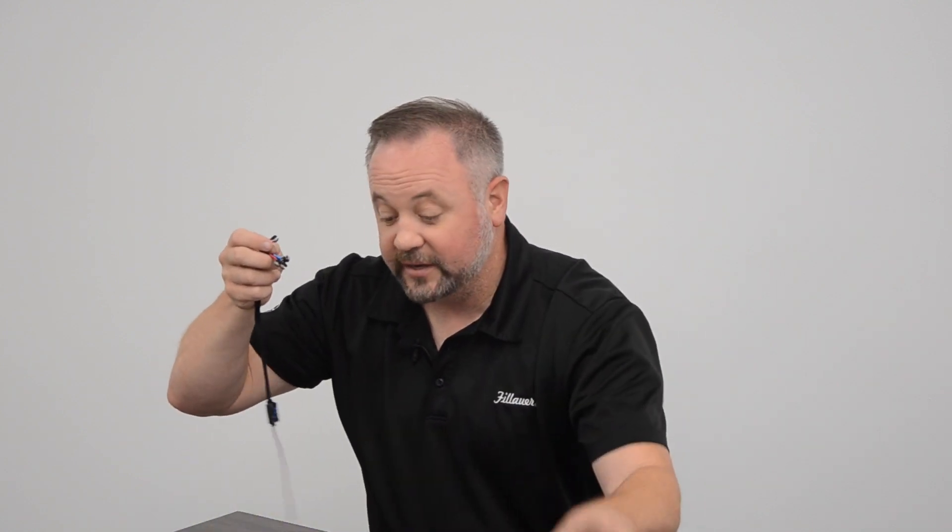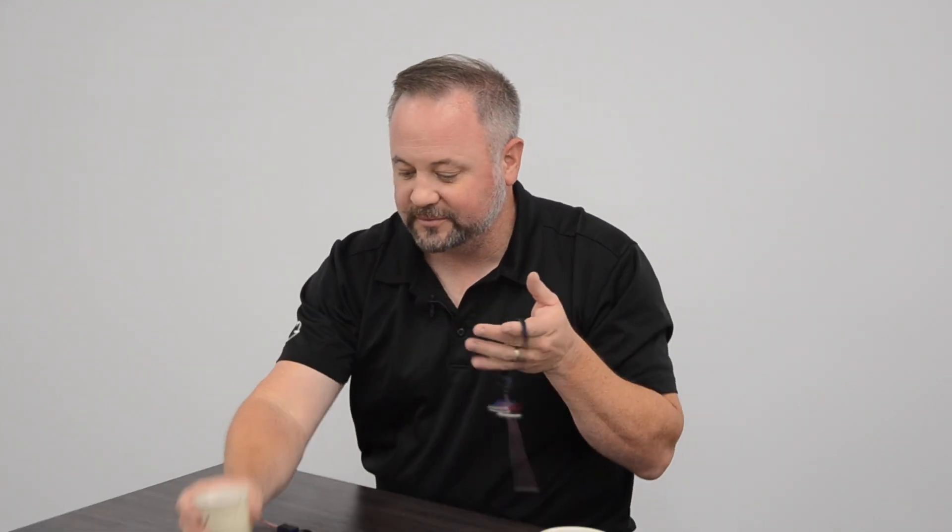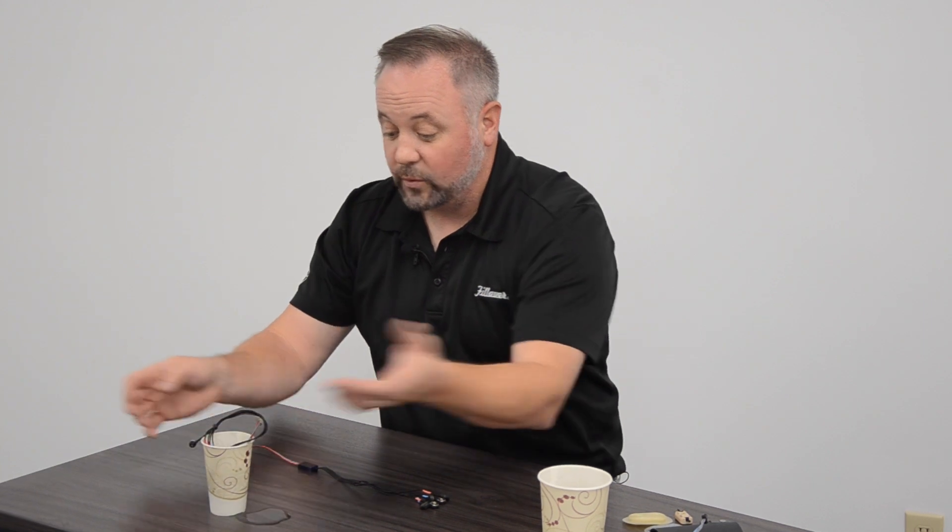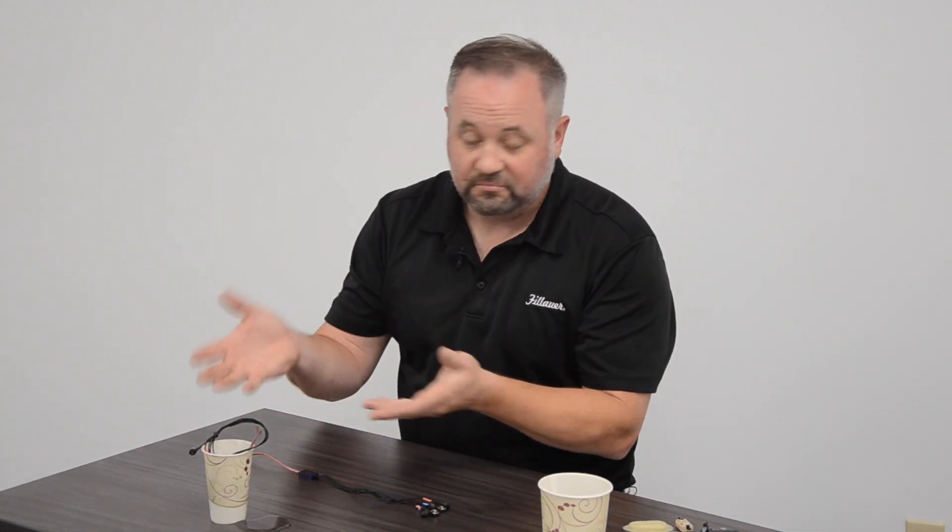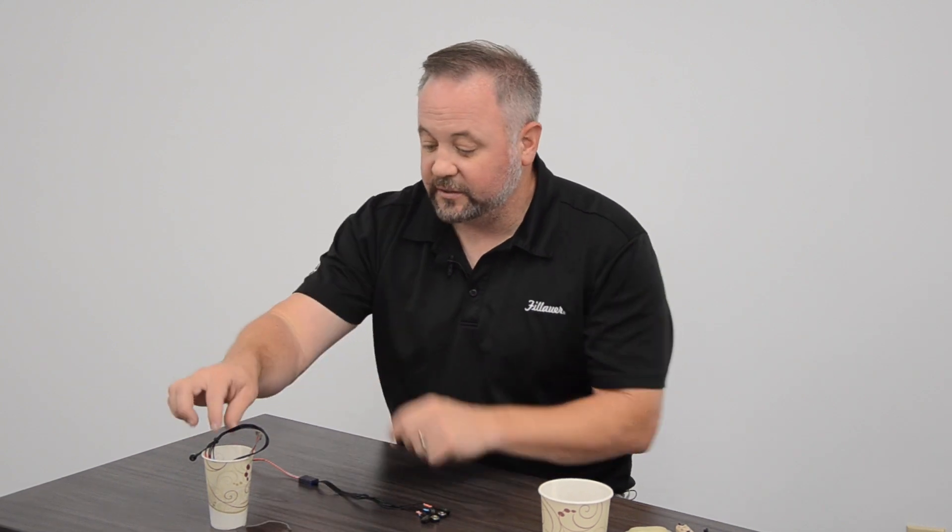The other thing I don't have to worry about is if I have that patient that tends to sweat on electrodes and cause lots of problems, I don't care about water anymore. The new Myo-1 electrode is actually waterproof. If it gets a little water in the socket, that's not a big deal. We're still going to be able to use this and get great control out of it.